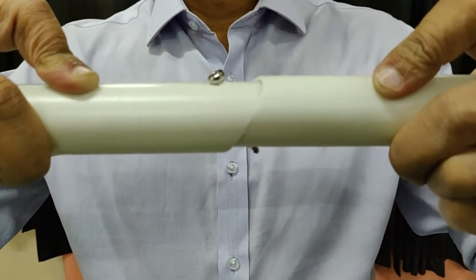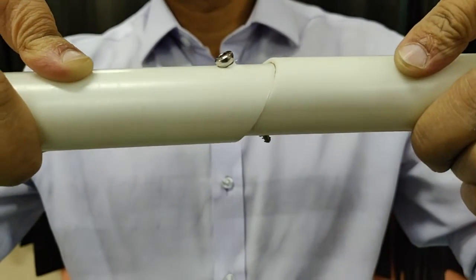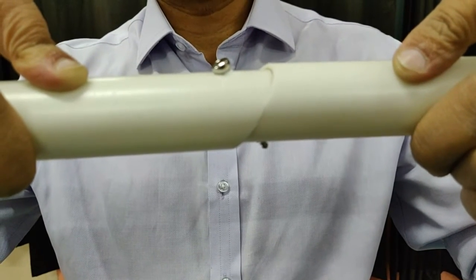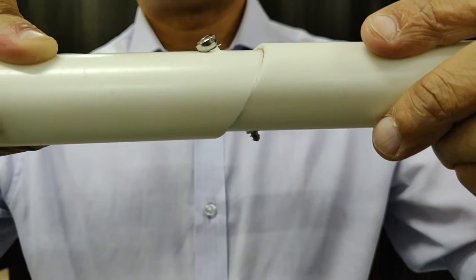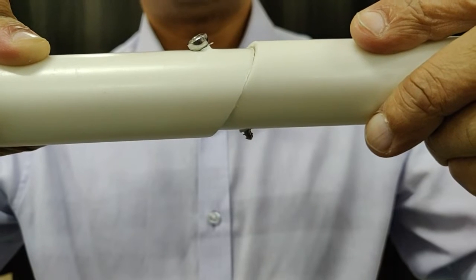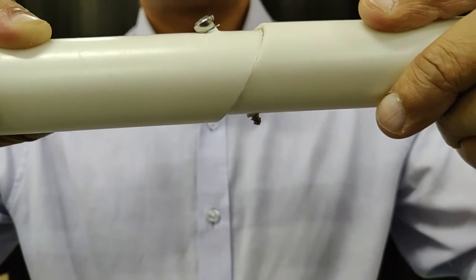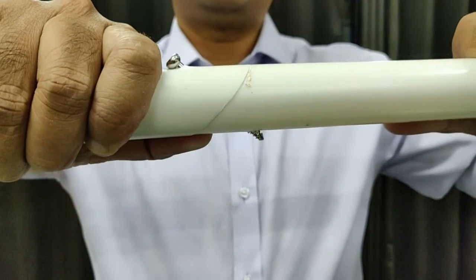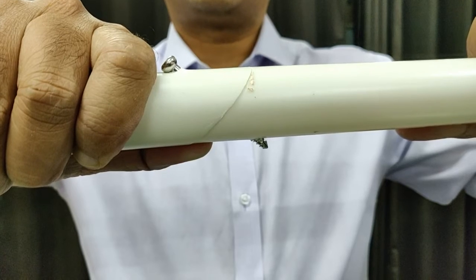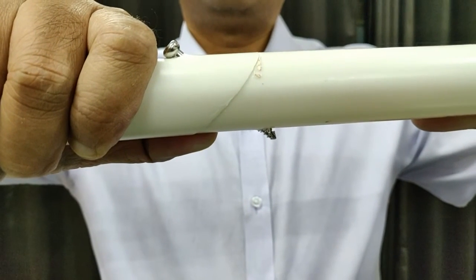I have created two plastic models to show the most important point: your screw must be perpendicular to the fracture site. If it is not perpendicular and you put a lag screw, it creates a slide with a step both on the top and bottom. It is extremely important that you get your direction correct and place your screw 90 degrees to the fracture. In the second model where we tried to be at 90 degrees to the fracture site, you can see there is no translation at the fracture site. Try to be 90 degrees to the fracture line orientation.